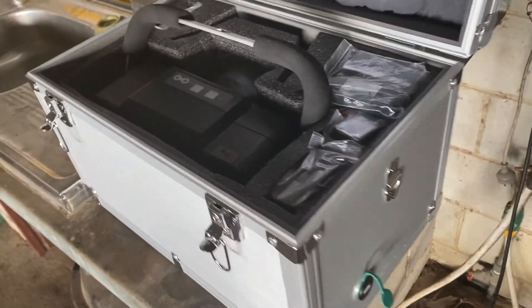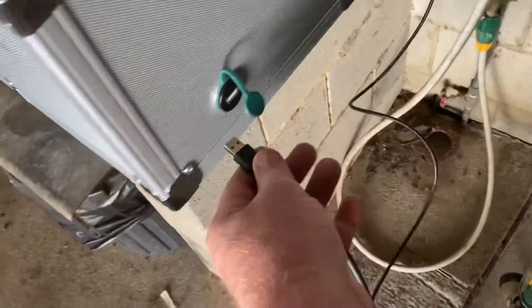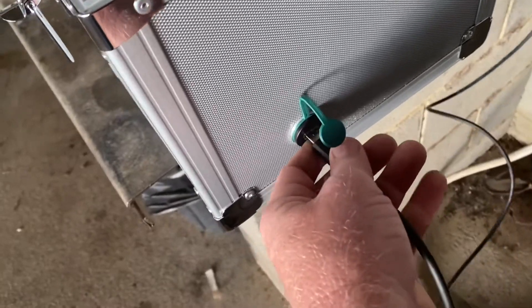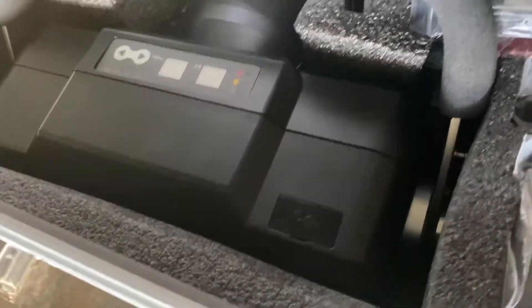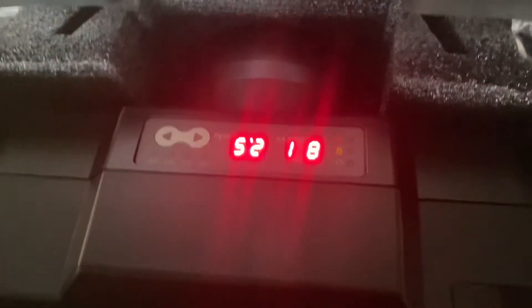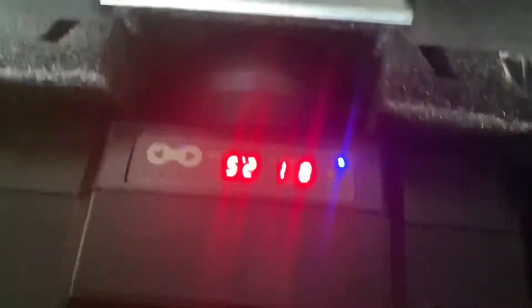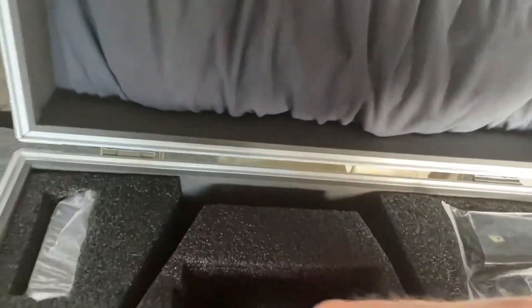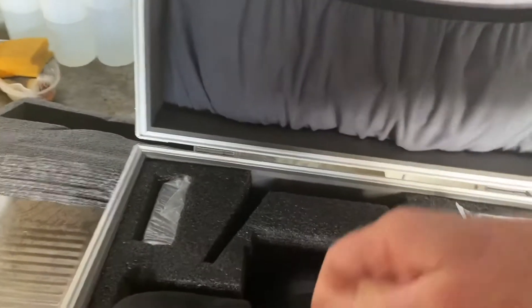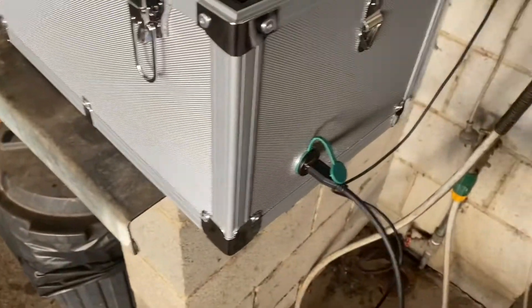You can charge this POSCOM just by leaving it in the box, plugging in the USB cable into the side of the case, and that will indicate it's starting to charge. The charge comes through by sitting on this little charging pad. Just like with your phone, you can have it sit in the box and as long as this is plugged in, it's going to charge.